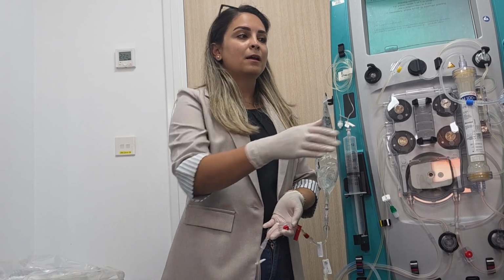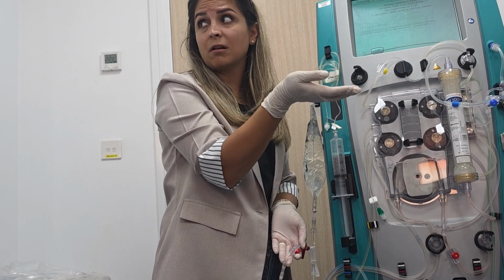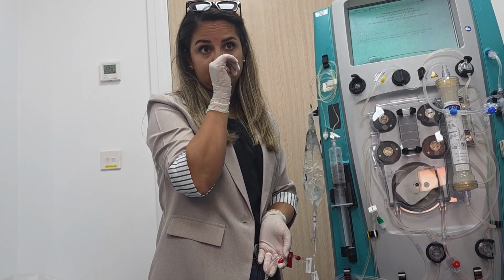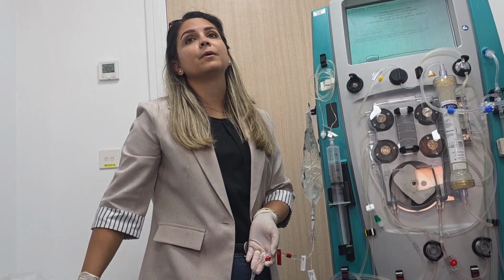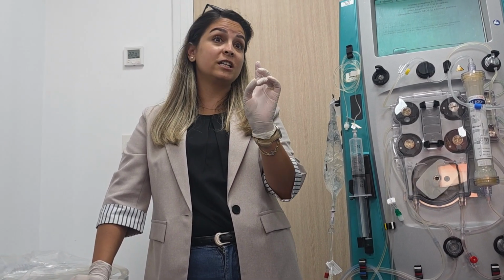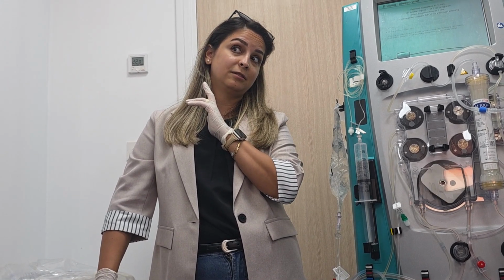So most of your patients have an arterial line, right? Or a central line. If it is a triple lumen, we are using inotropes for the third lumen, so we are not inserting a central line. Sometimes the doctors have to prick the patient, no choice, if there is no central line and no arterial line.